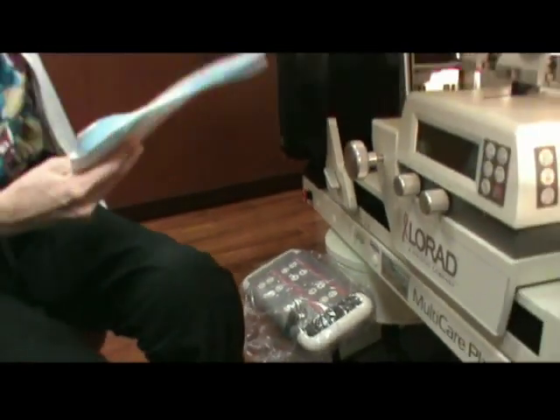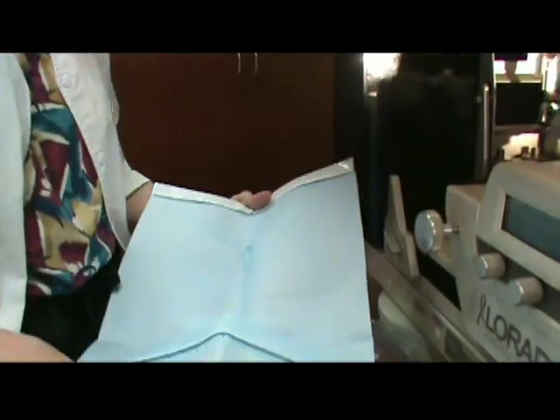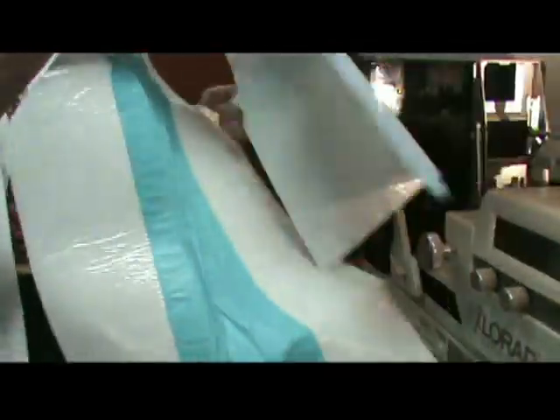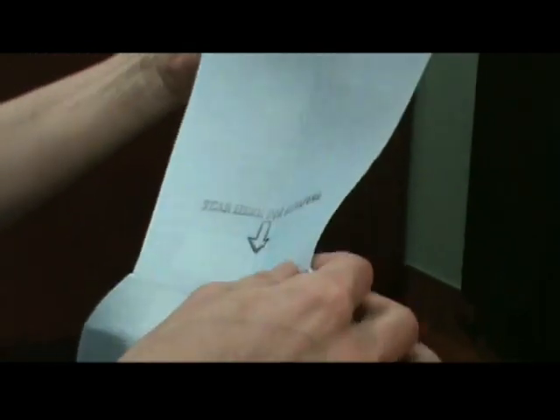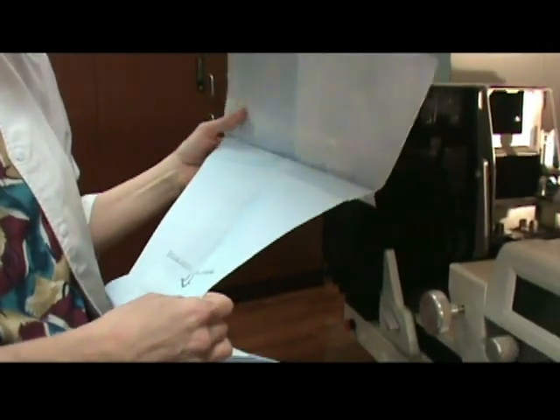The second part is what we call our one-piece LORAD system. You'll notice a marking that says 'tear here for removal.' This also has the same perforation as our other draping system, the LS701. There are a few conveniences about this which I'll show you as we do the installation.